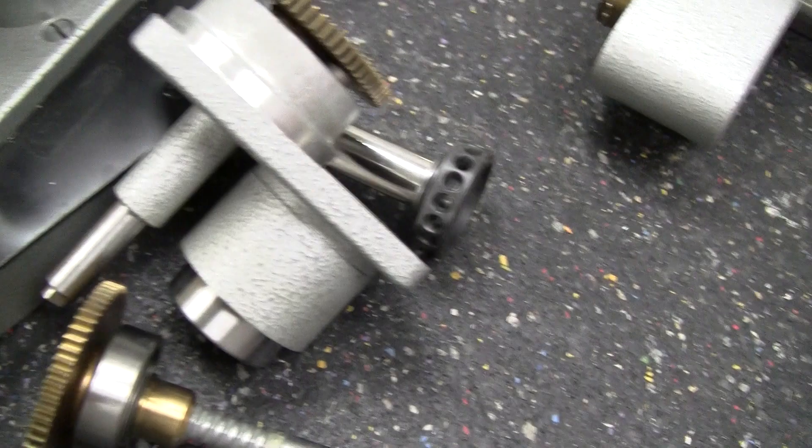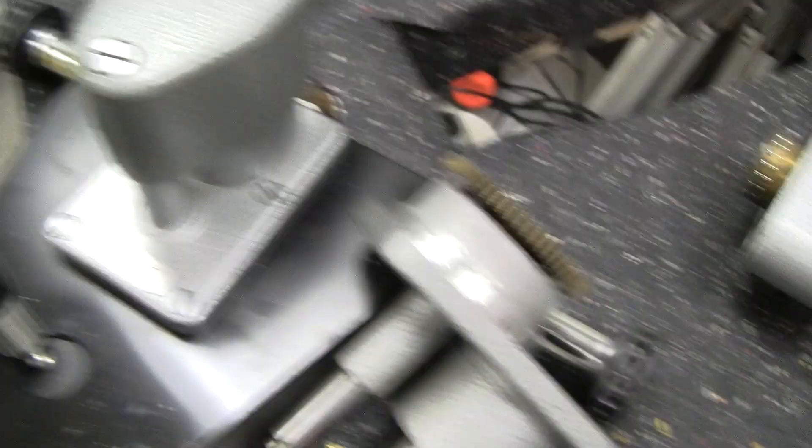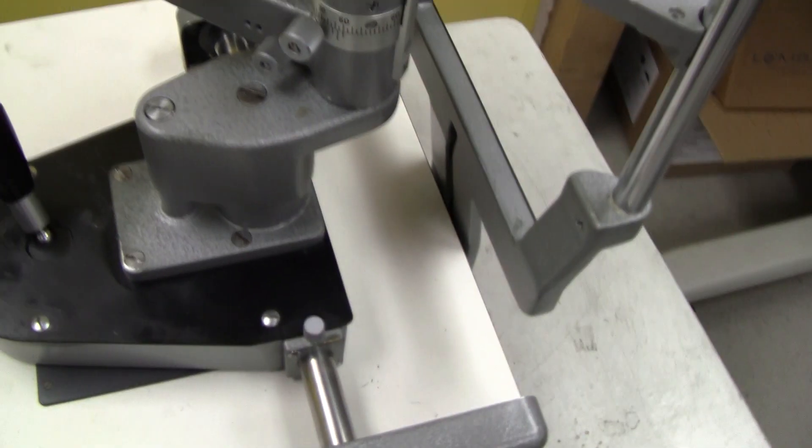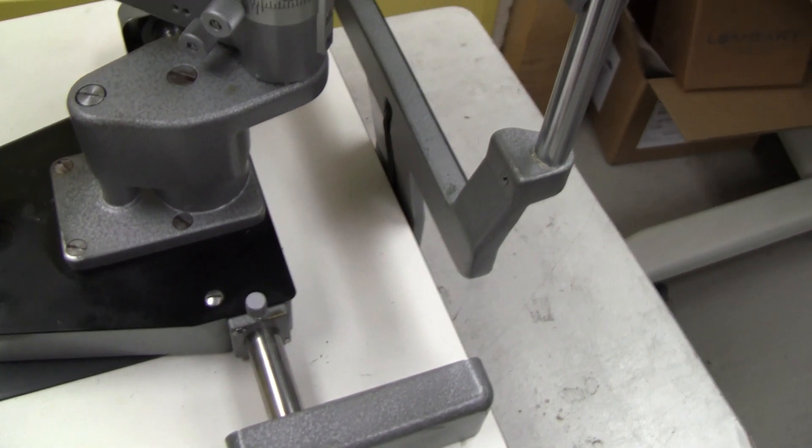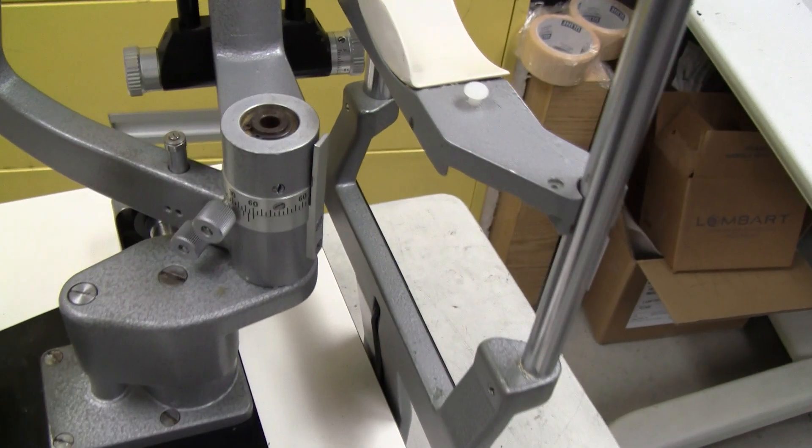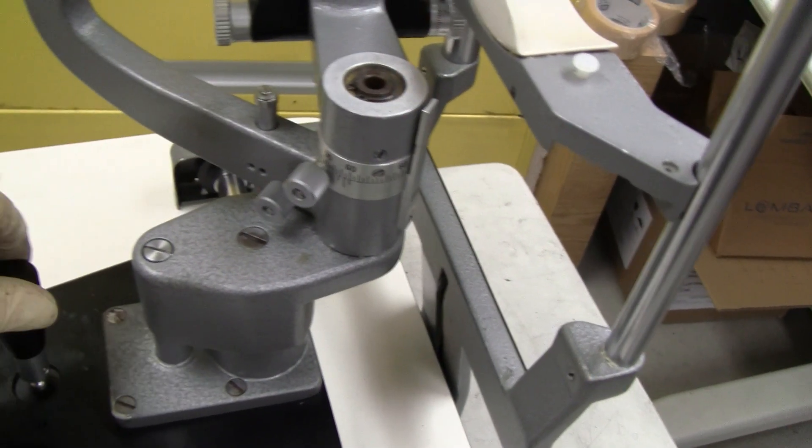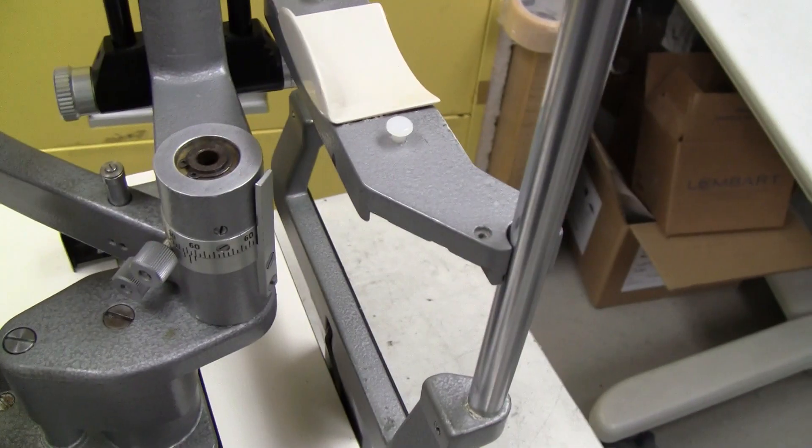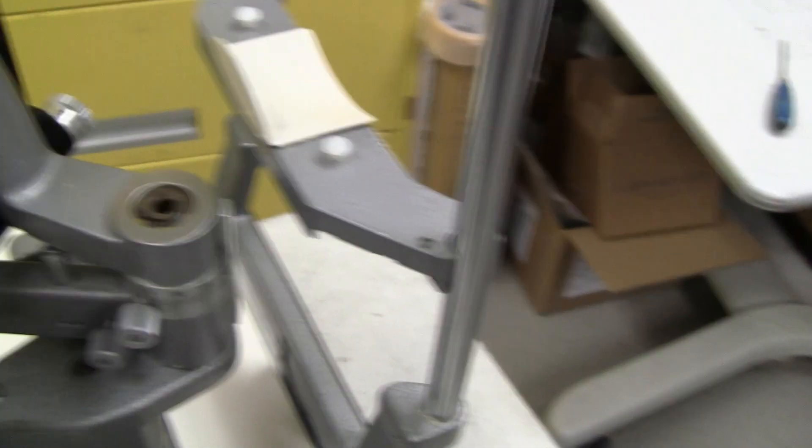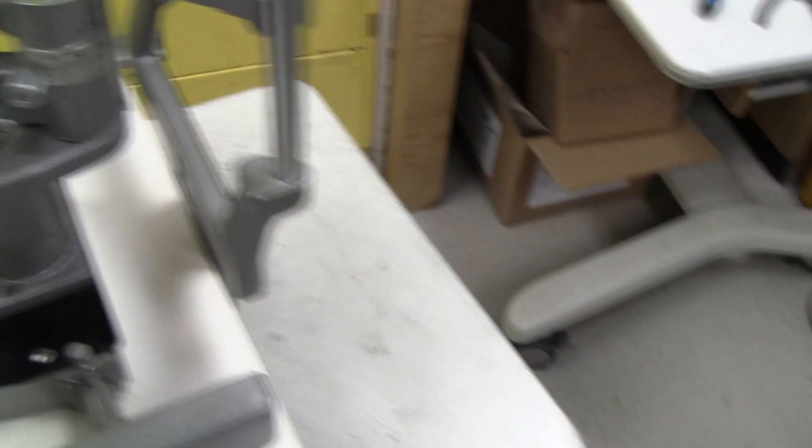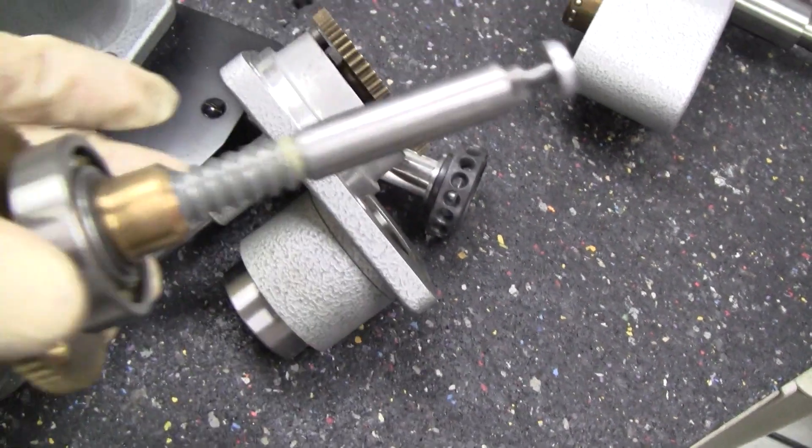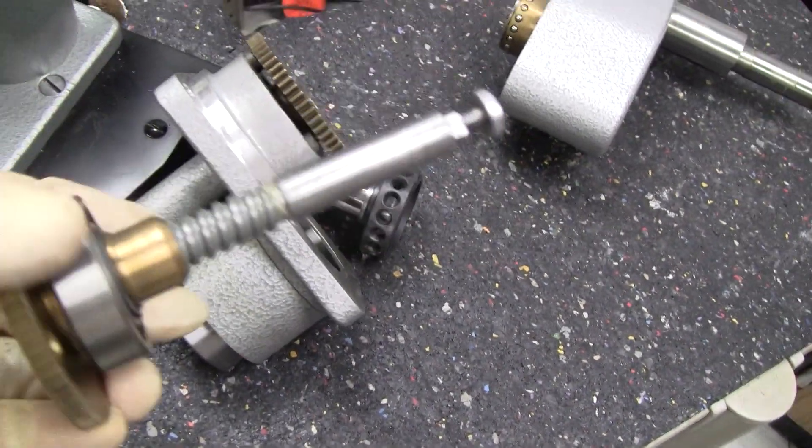Put it all back together. And that should solve your drifting by itself issue. A new spring, if that doesn't do it, then re-grease your spindle assembly.